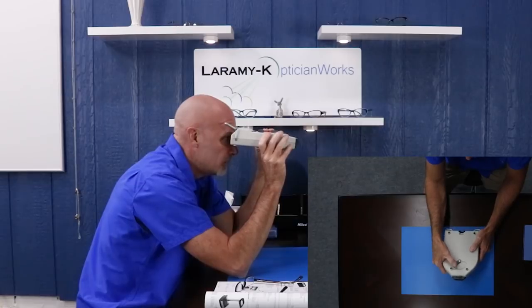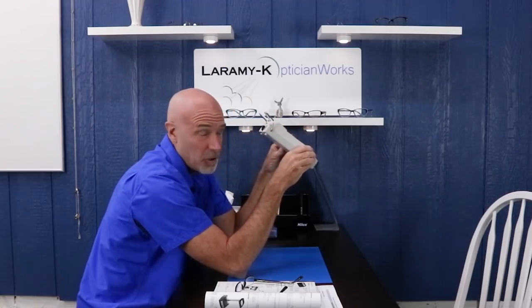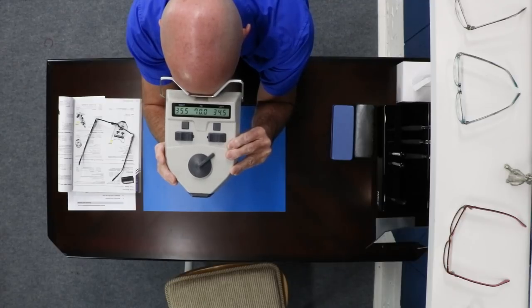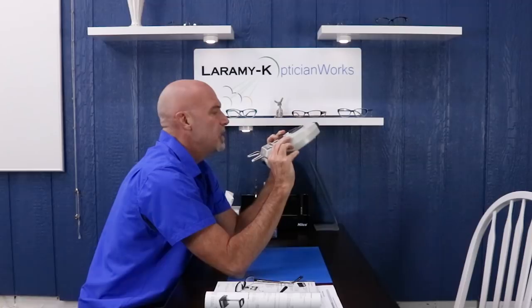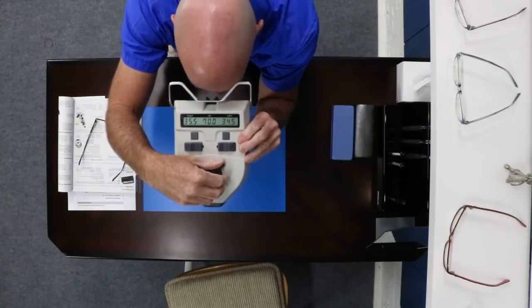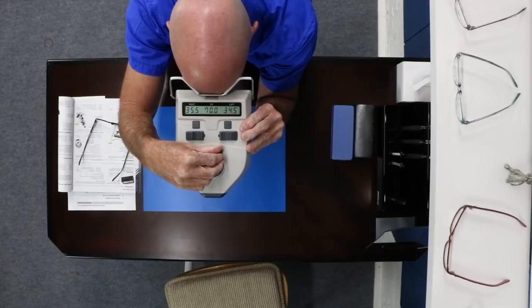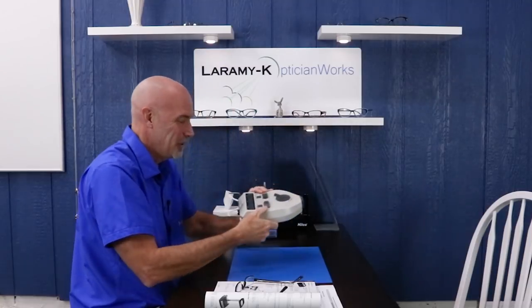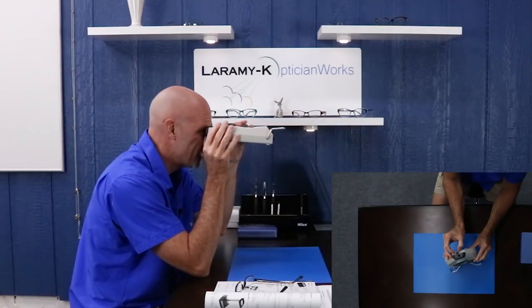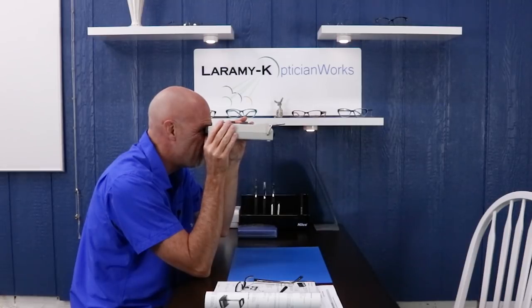We've got an occluder — close my right eye. That's a little weird. You'd have to be really careful; if you did occlude, it appears you could actually have it kind of half closed. It doesn't have a lock for close, it only has a lock for center, so I would be careful about that. Not that you occlude very much, so just leave it locked in the middle. I'm not a fan of adjusting for distance and doing near PDs, but let's see what happens. That's beautiful, very nice and smooth — you can feel your eyes converging. It also has a magnifier, and that really sharpens up, which is especially good for somebody who can't accommodate anymore. That's a good feature.